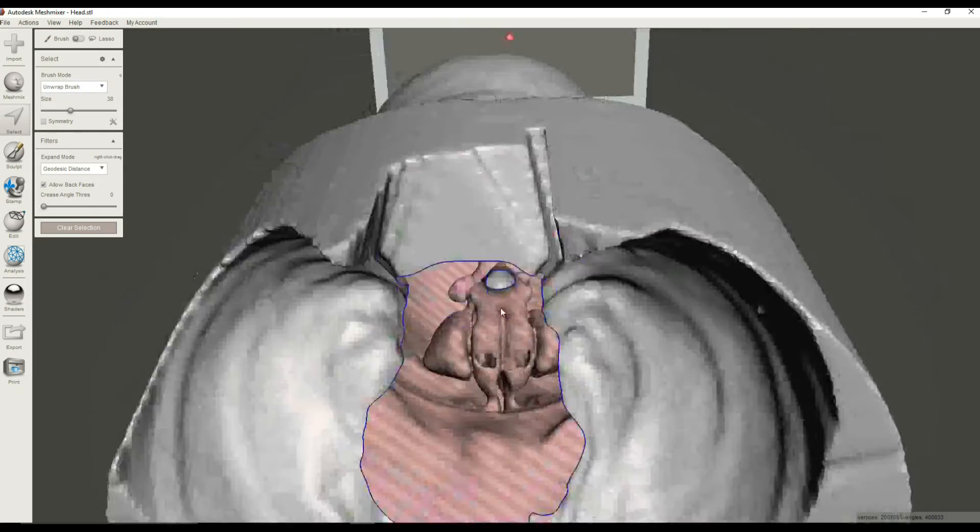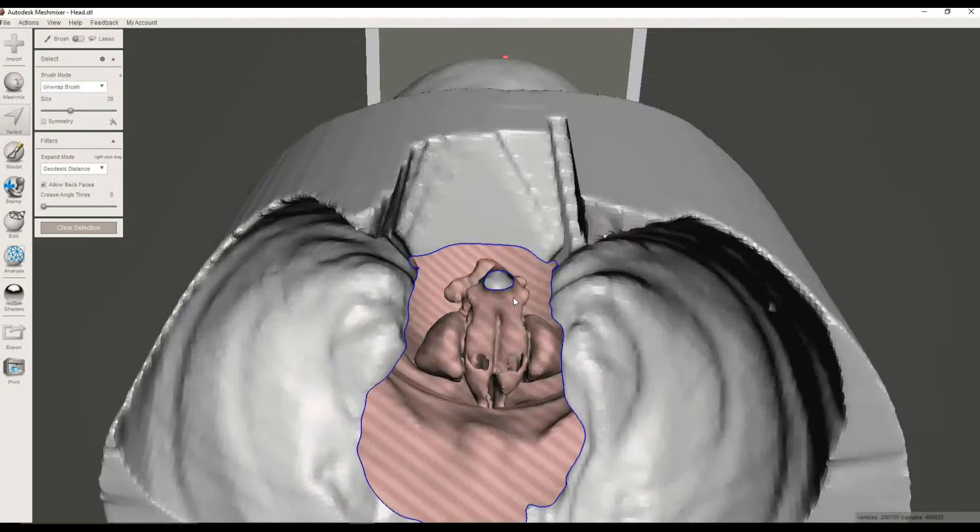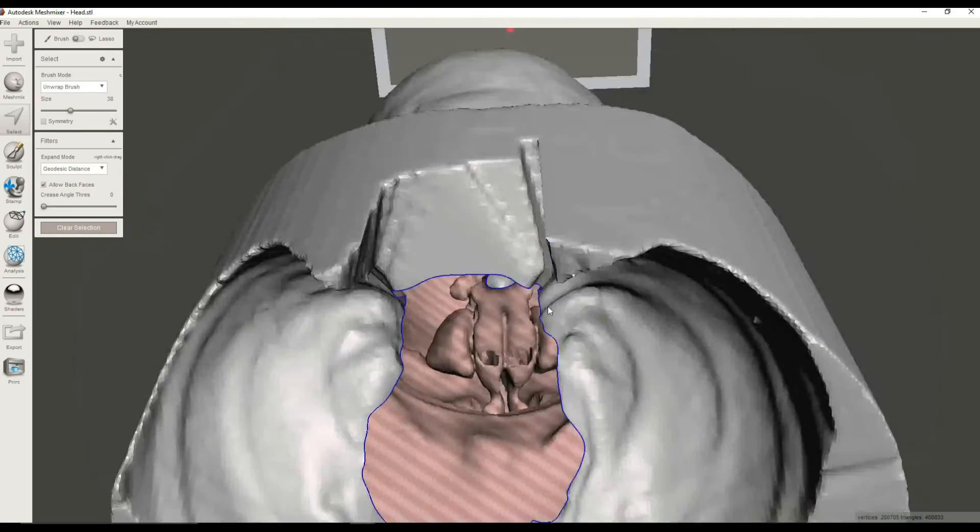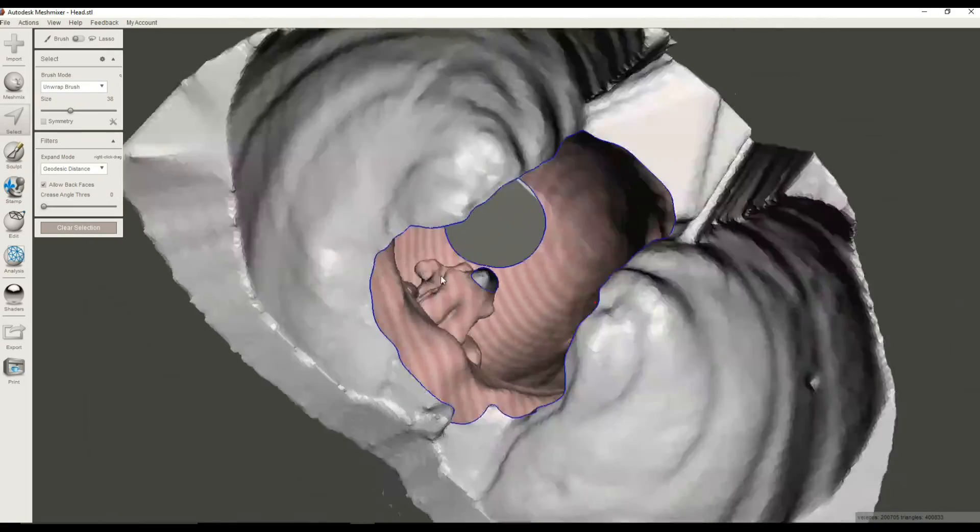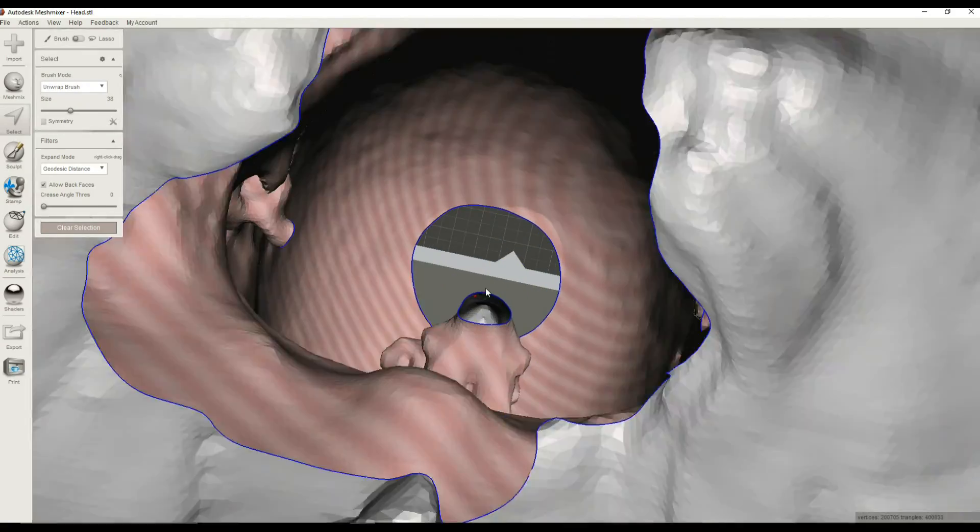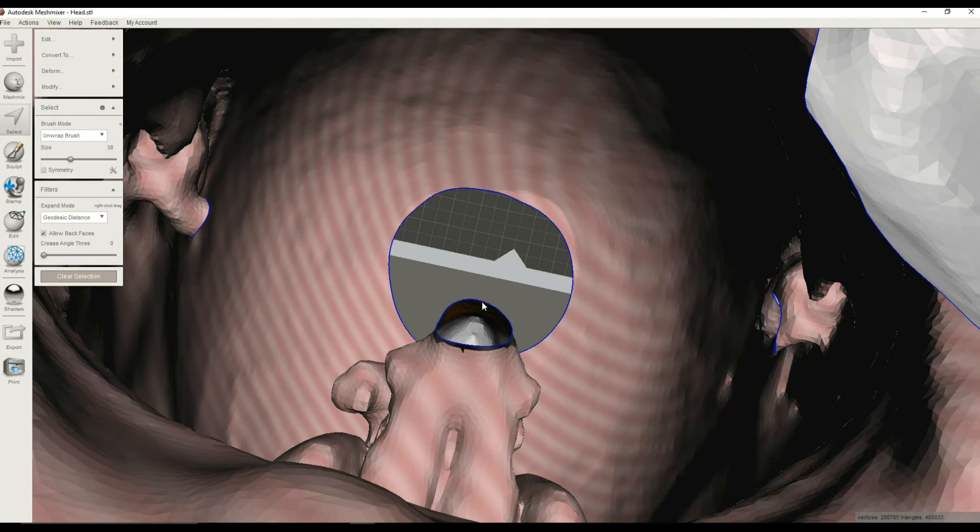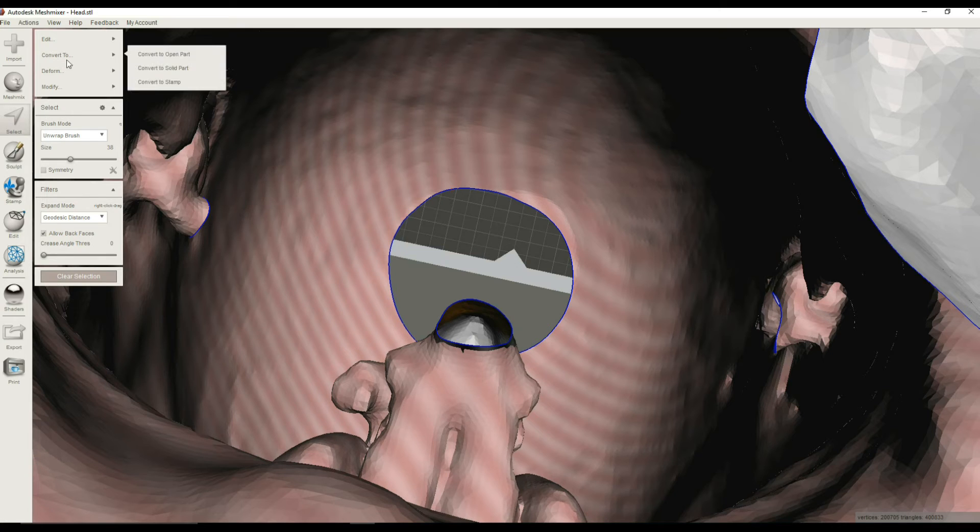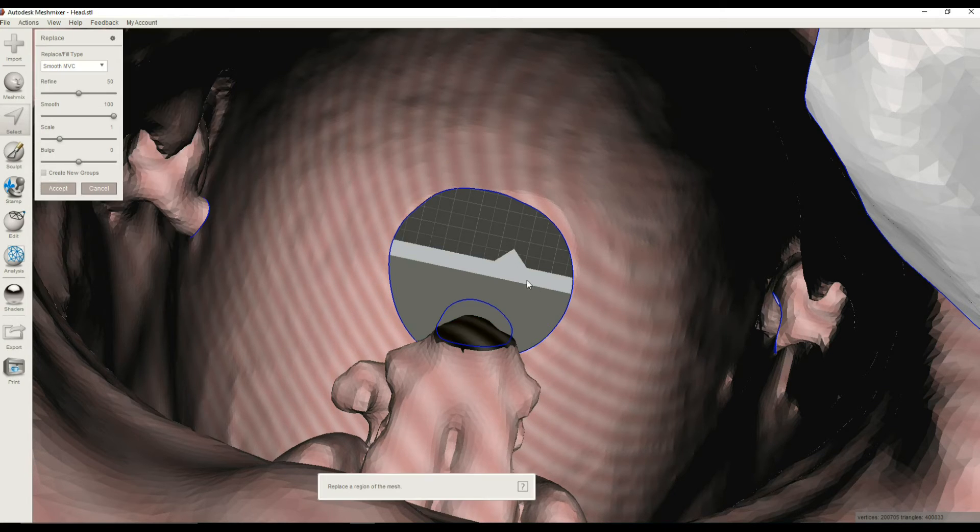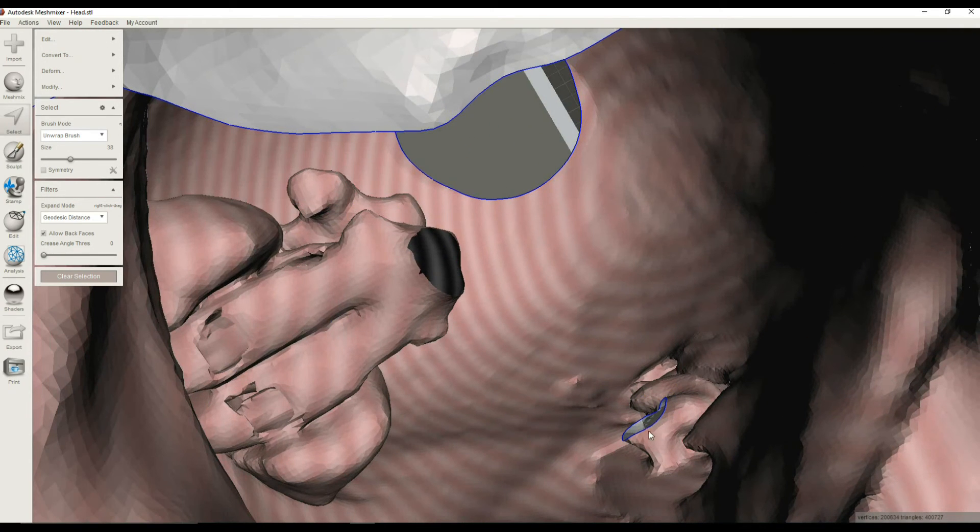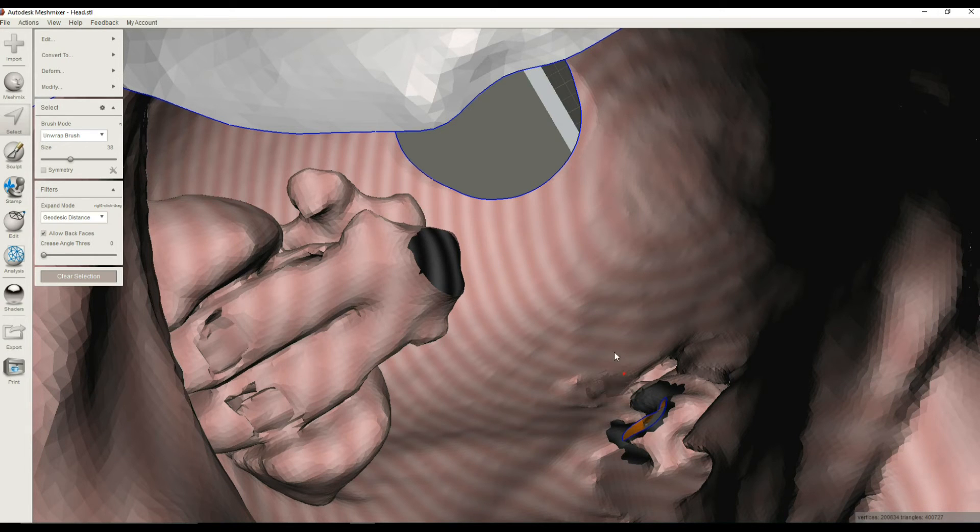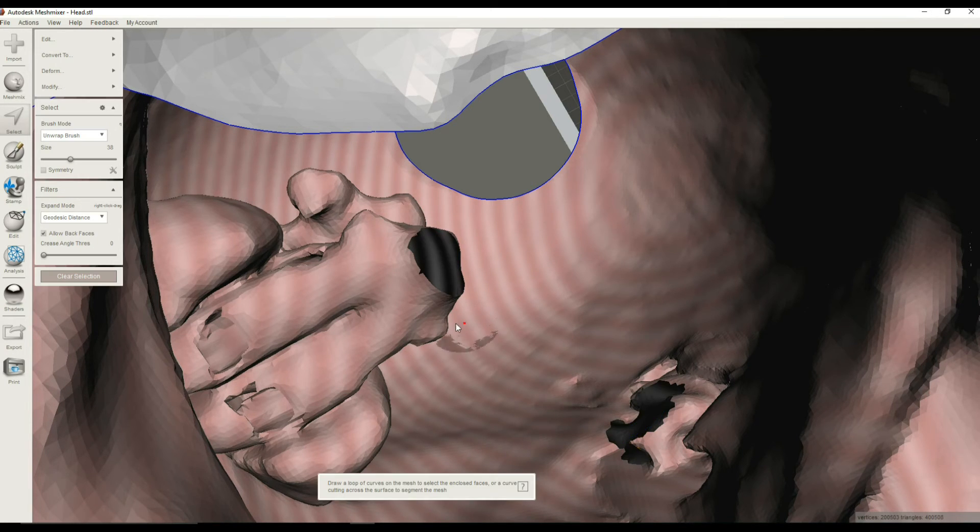So now we've trimmed our structures on the inside. We want to kind of close up these holes. So what I'm going to do is double-click on the edge here and hit the F key to create the face. Erase and Fill, or the F key. Boom. Accept that. Looks good. Same thing here. Double-click on this edge. Hit the F key. Accept.